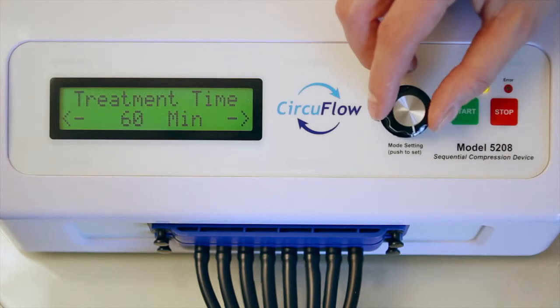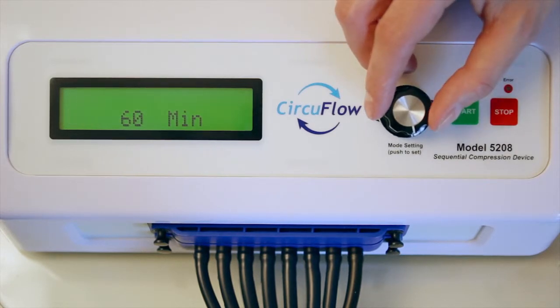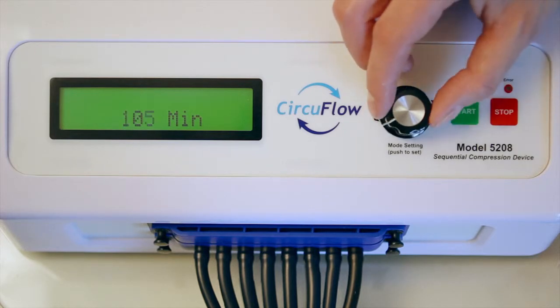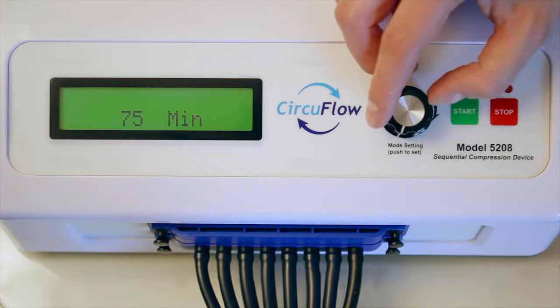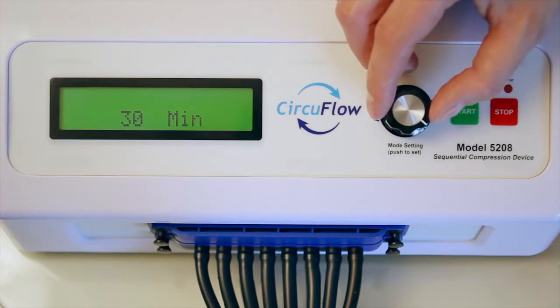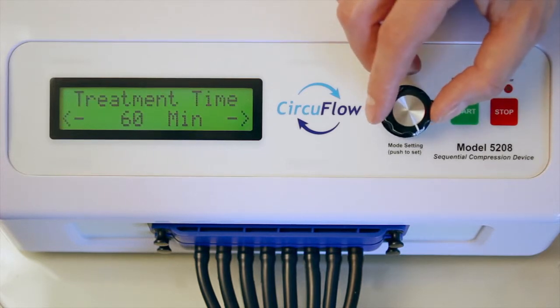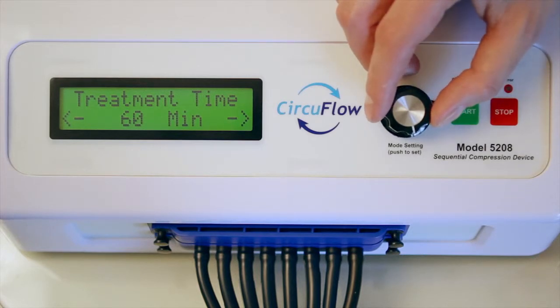Access the third parameter, treatment time, by turning the knob to the right and pushing to select. Increase the treatment time by turning the knob to the right. Decrease time by turning to the left. The treatment time can range from 15 to 180 minutes. Push the knob to confirm the new treatment time.